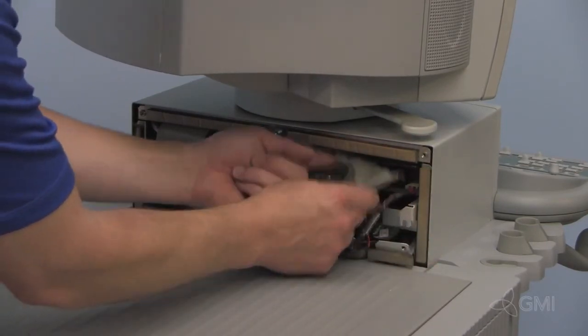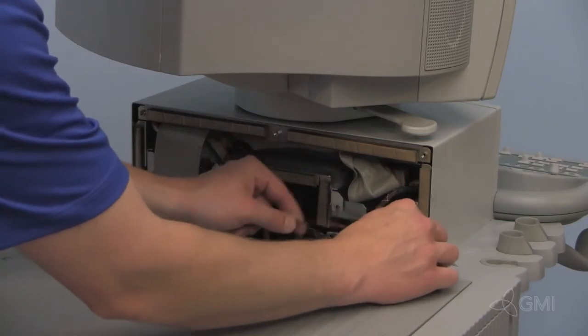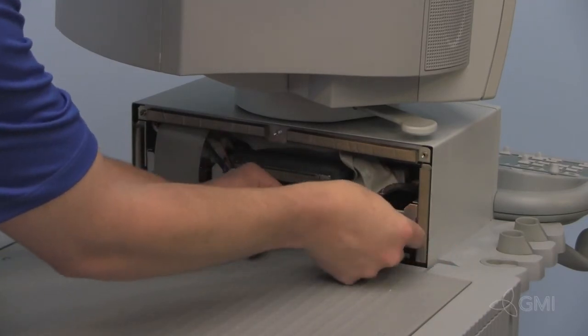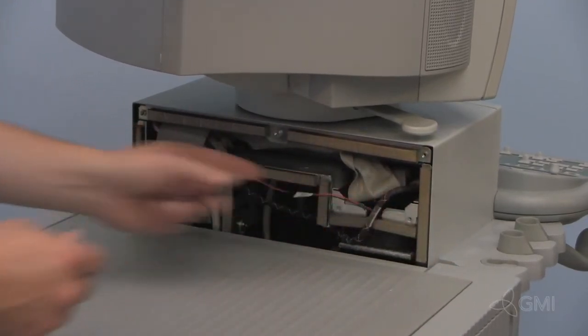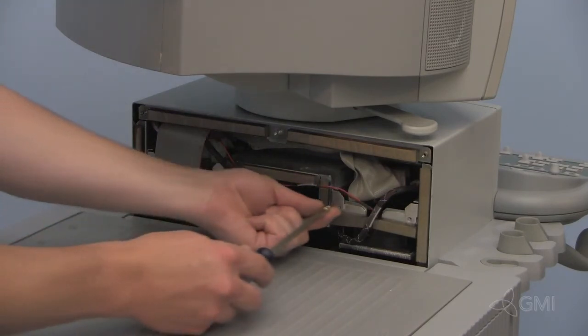Reinsert the drive assembly. The drive assembly should hold the fan in place. Replace the two screws.